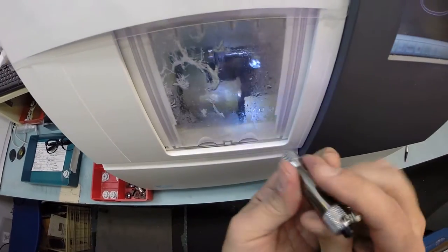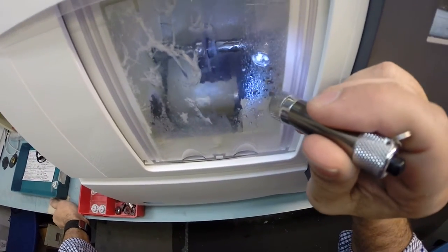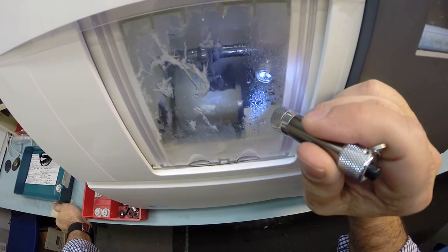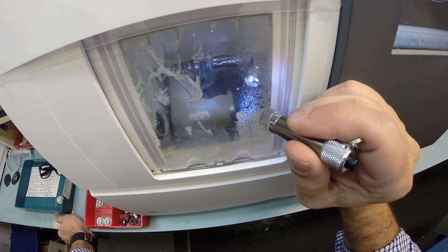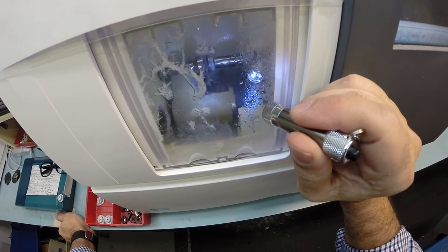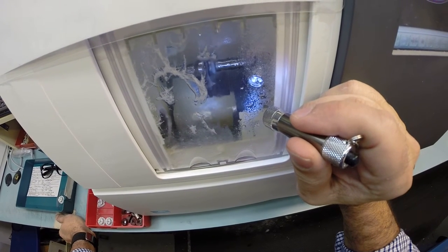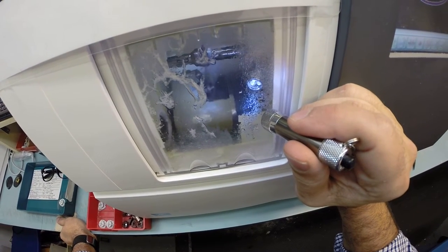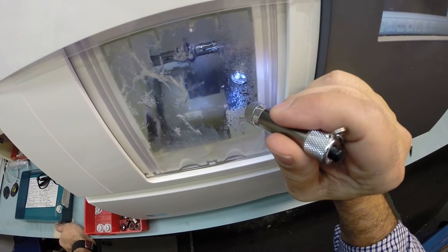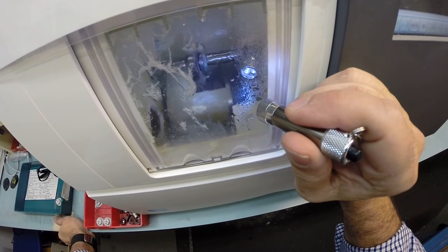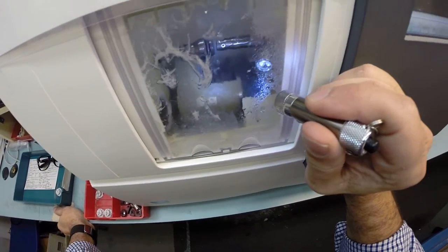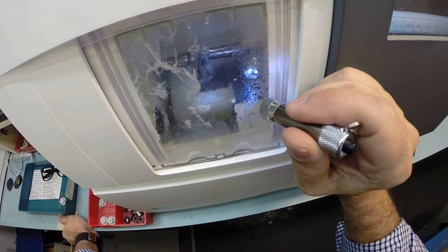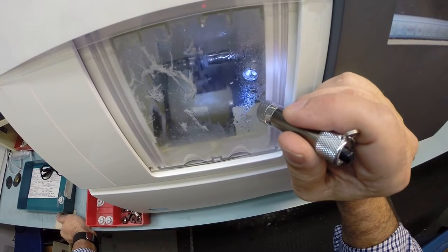So the lens has already been cutting down on the cutting wheel. It's actually getting a safety bevel, which is just going to smooth out the edges where they're left over from the cutting cycle. It does the convex front surface of the lens first, and now it's doing the concave back surface of the lens to make everything nice and smooth before I attempt to mount it into the frame.